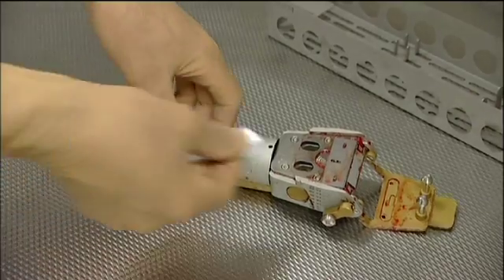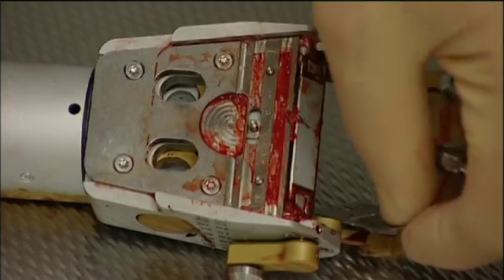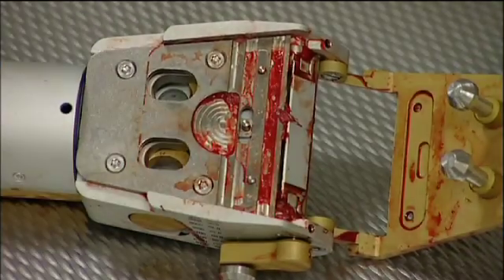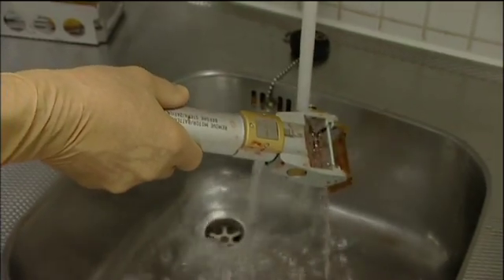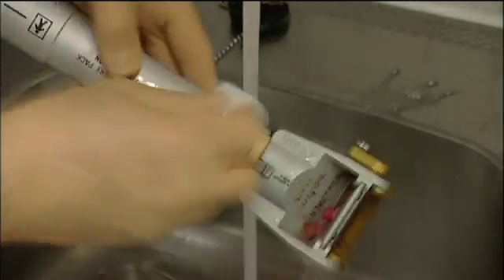After use, when motor and battery have been taken out, the blade is removed from the instrument. It's recommended to remove blood and tissue remnants shortly after use by rinsing with warm water and a soft brush or gauze. This pre-cleaning will prevent unnecessary corrosion of the instrument.